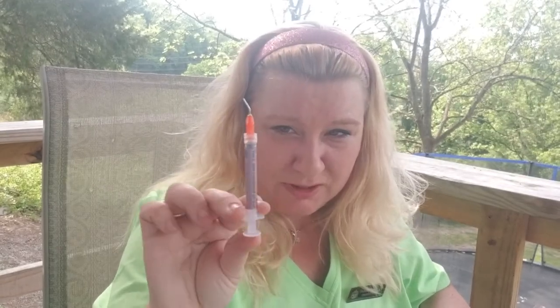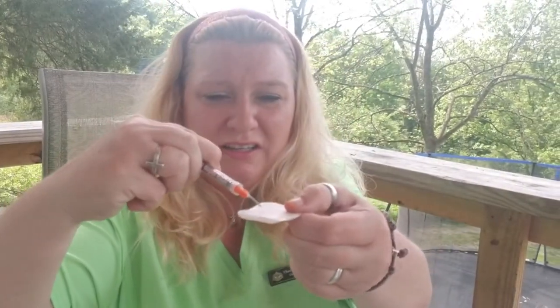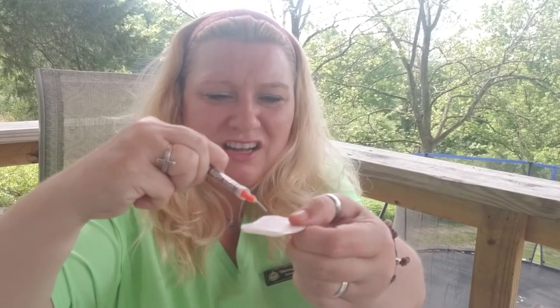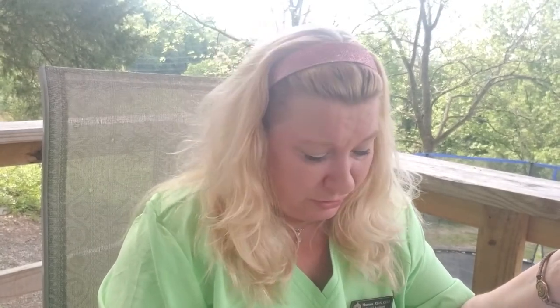Now let's talk about etch. Remember the tips come off after every patient. There are so many different tips out here that fit the etch — it doesn't really matter as long as you check it before you hand it to the dentist and you hand it to them this way. And always bleed it. Find something to bleed it on — take a little bit on a 2x2 gauze and make sure it comes out. If it's stuck and the doctor keeps pushing, it could shoot out into the mouth. So make sure that it bleeds. If not, get a new tip. Keep a couple extra tips out in case one malfunctions, somewhere where it won't get dirty or contaminated.